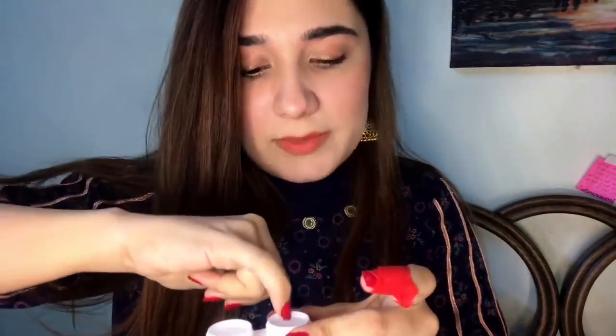Now let's apply the other lens. I put the tape on it and hold the lens carefully. Keep the lens on your finger and ease it in gently. Keep your head back and stay relaxed. The lens is going in — give your eyes a little air once the lens is placed so they feel cool and comfortable.